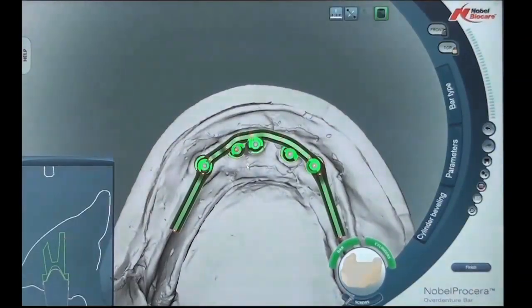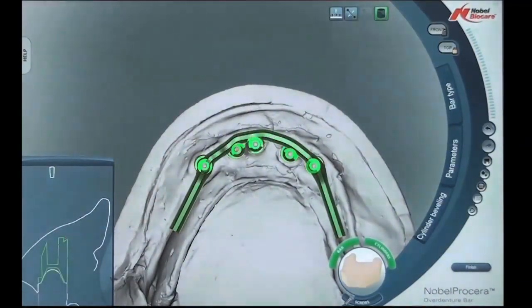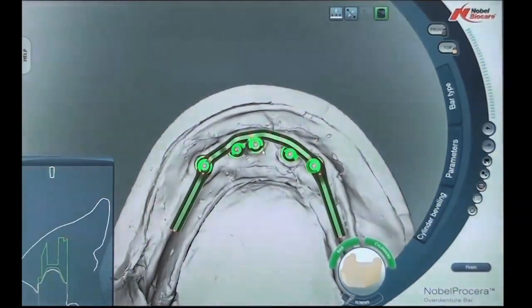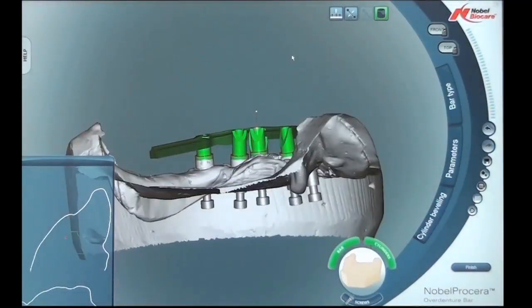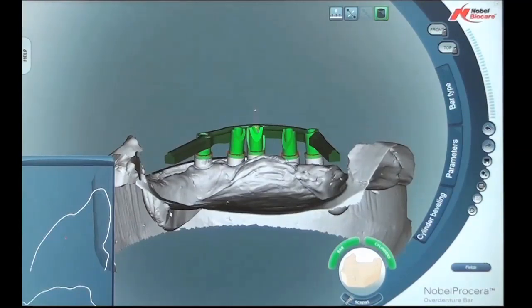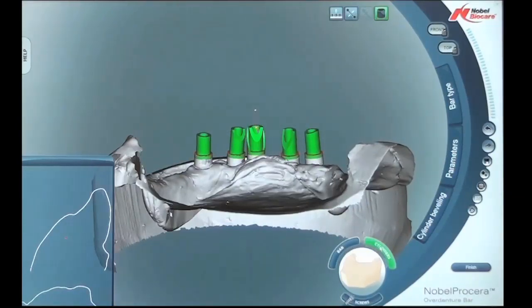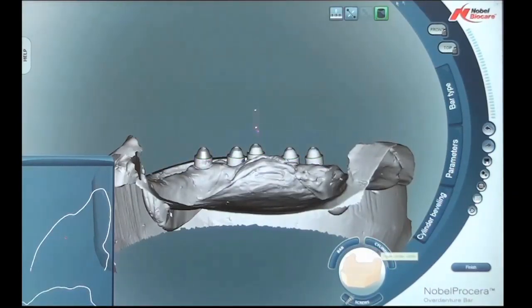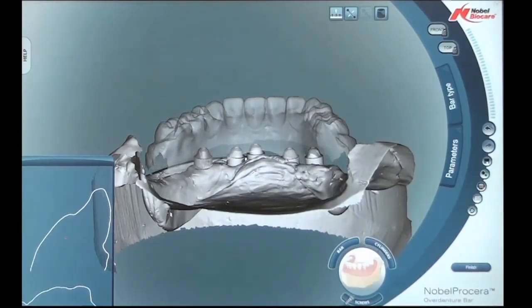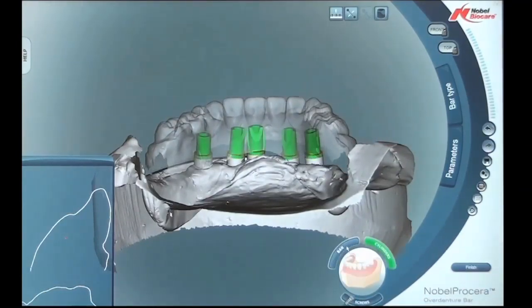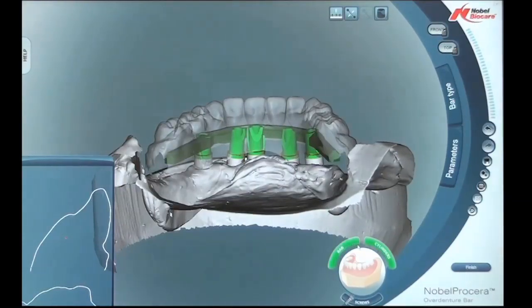Getting a little bit more rotation to get it ideal. Once again, we're looking for maximum tongue space, rotating to the ideal position. Taking a final look over everything — remove the bar, remove the cylinders, right back to the multi-unit abutments. Click on the denture to get a solid denture, or double click to get the clear transparent mode. Click on the cylinders, click on the bar, and we have a final bar design.